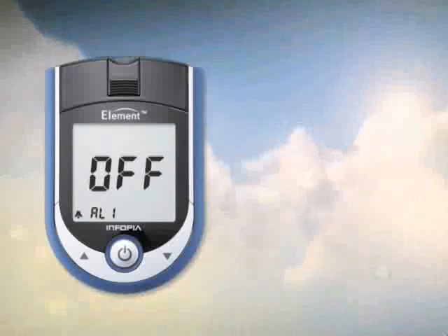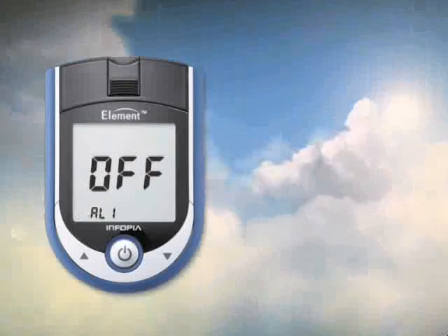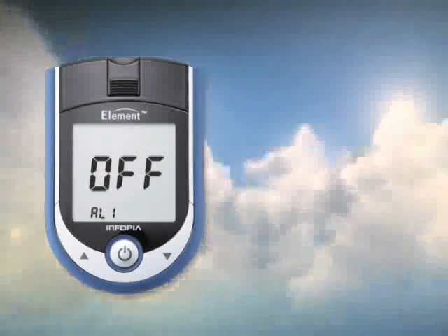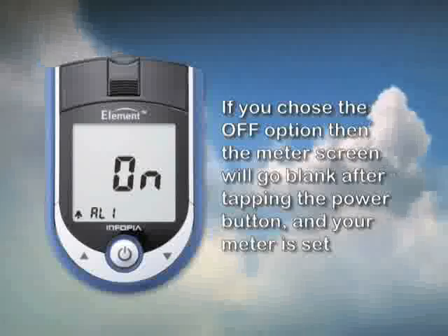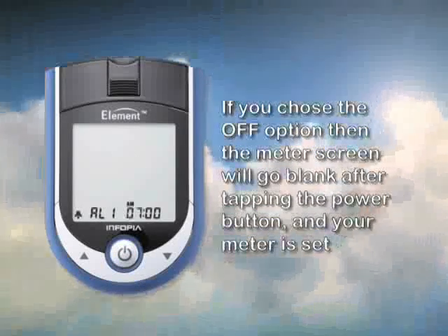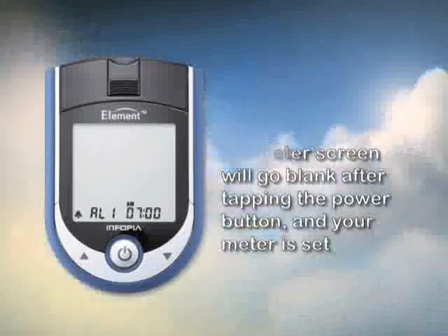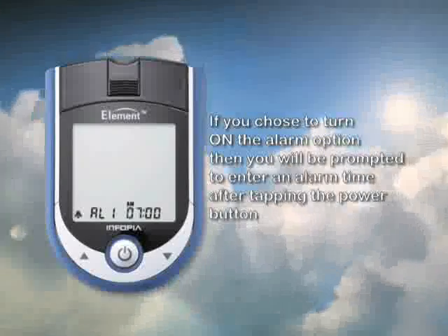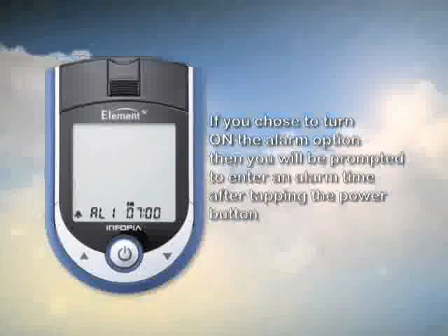AL1 will appear at the bottom of your screen with a flashing bell in the left hand corner. This is the first of five daily alarms you can set. Press the up or down button to turn this feature on or off, then tap the power button. If you select it off, the meter screen will just go blank and your setup is complete. If you select it on, the time will show up in the bottom right hand corner with the hour blinking.